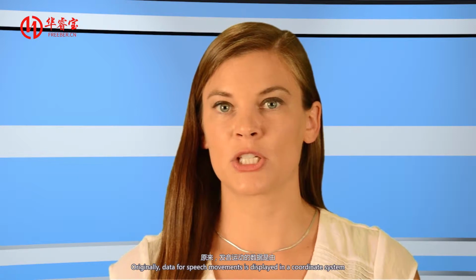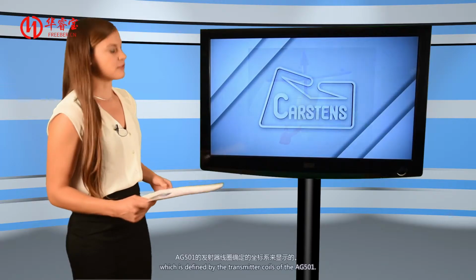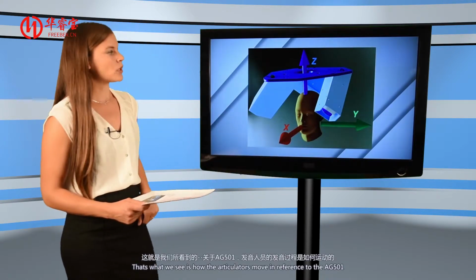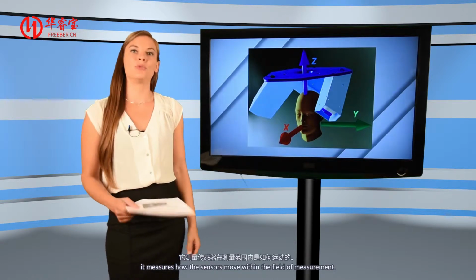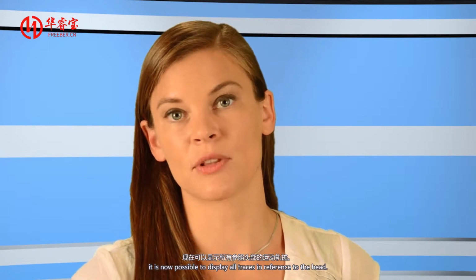Originally, data for speech movements is displayed in reference to a coordinate system which is defined by the transmitter coils of the AG501. Thus, what we see is how the articulators move in reference to the AG501, which is what it's meant to do. It measures how the sensors move within the field of measurement. With BitePlane and head correction, it is now possible to display all traces in reference to the head.